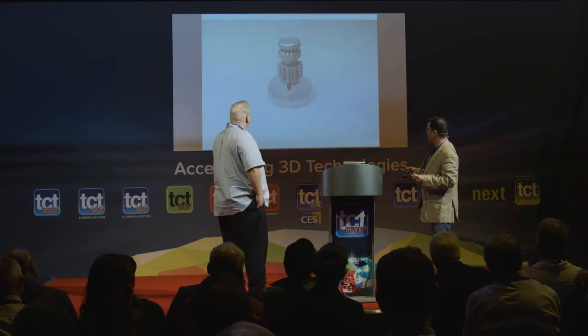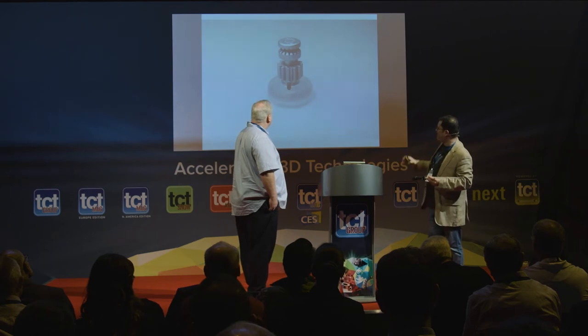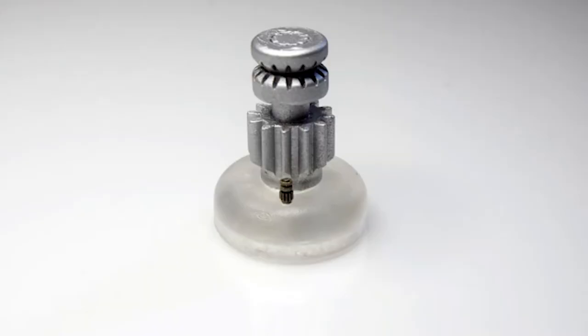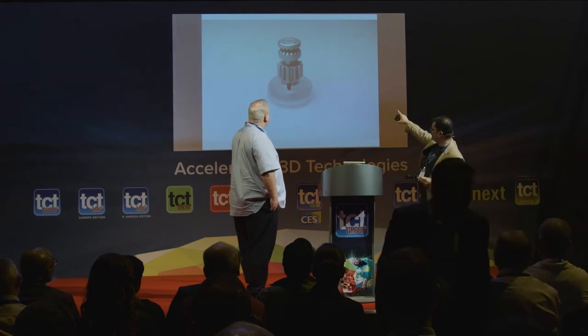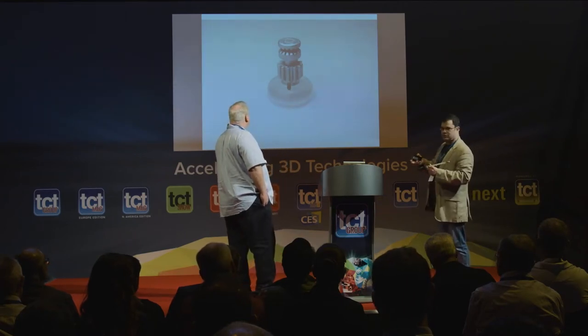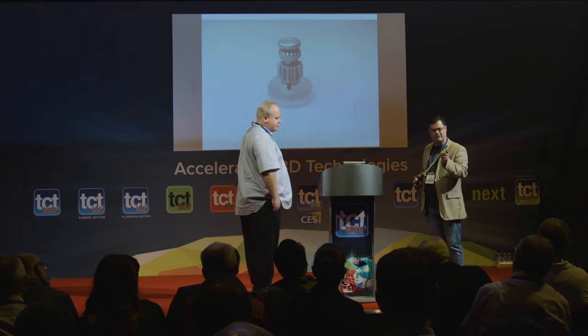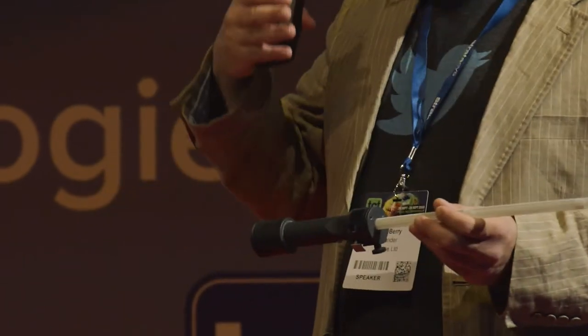This is just to give you a sense of scale. One of the problems that we had with people trying to see these components is there was a lot of squinting. So we ended up printing at eight scale so that people would be able to see what's going on. And these are two of the components obviously were the ones in front. Now to give you a sense of proportion, the bottom part, you can see the shaft going through the top, that is a one millimeter shaft. And it is crenulated so that the roller, the top part, sleeves on but can't rotate. One of the problems that we had previously with components was that if you have a smooth shaft with a hole on the roller that fits onto the shaft, the surface area to bond the two together is so small, they were just breaking between the two very, very quickly. So the idea that now you can print components consistently with an effect where you attach one to the other and it can't rotate was really a very big step for us. And it allowed us to be able to miniaturize the components that go into here with the confidence that it would then function in rotating a needle.